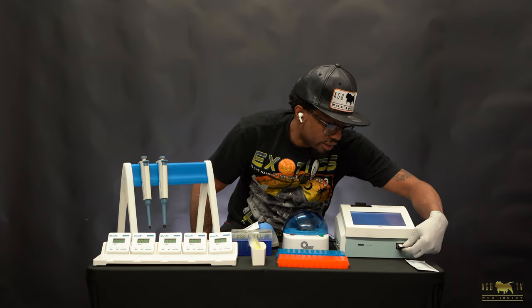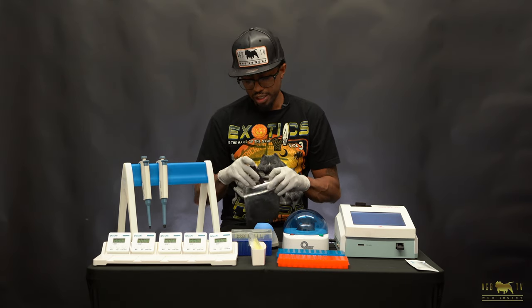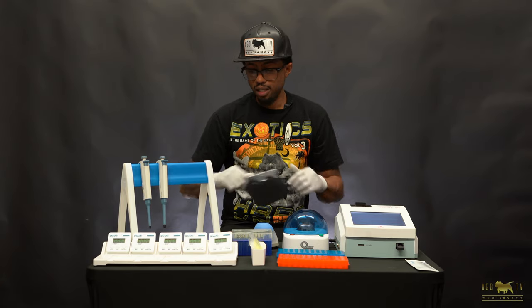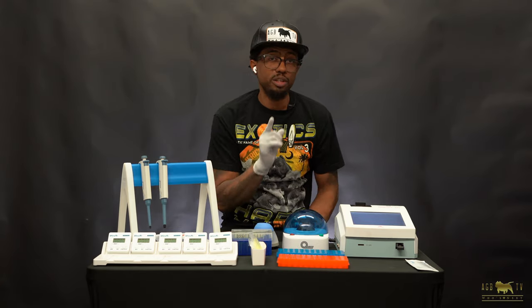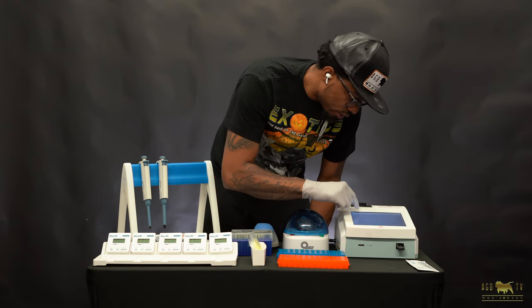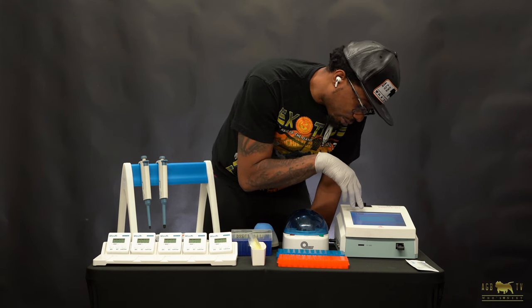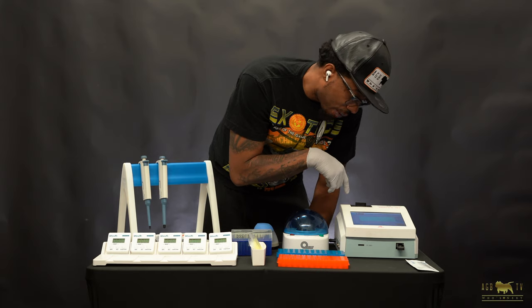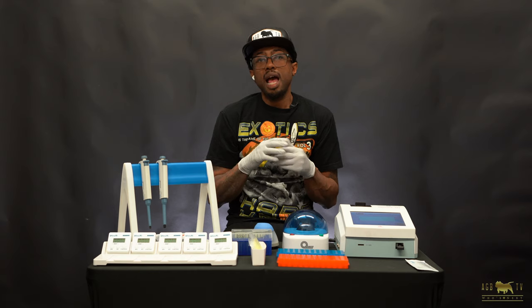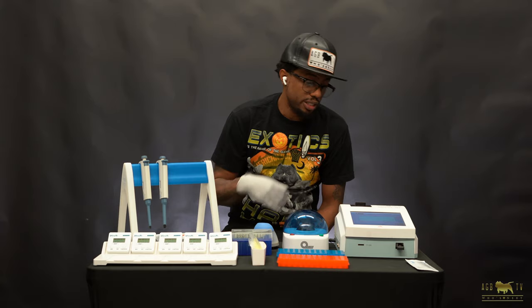The machine is all good, everything is normal. Take that out and put it right back into the sealed bag, because you want to make sure it stays clean so nothing ruins that slot — it's very important that this machine is always running normally. After that, you'll go to test and proceed to select serum and plasma. It has a whole blood option as well, but we always do serum and plasma because we think it makes a much more accurate result for your progesterone test.